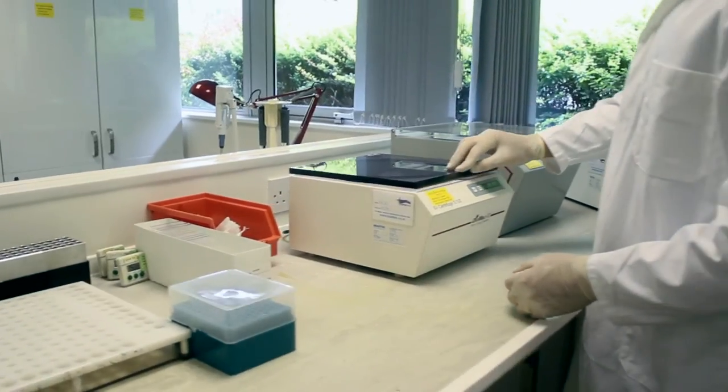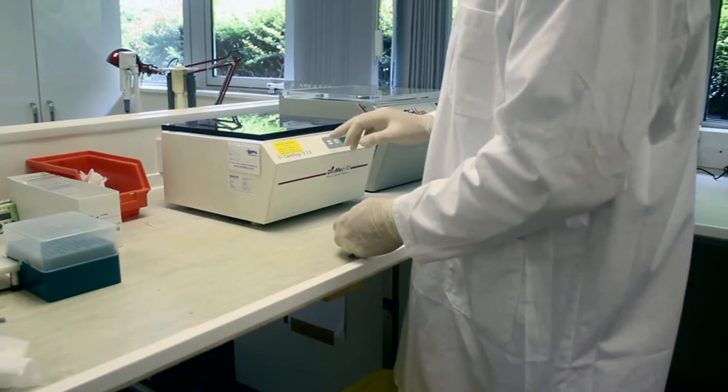Different types of gel card may require different centrifuges, but the principle of balancing the cards remains the same.